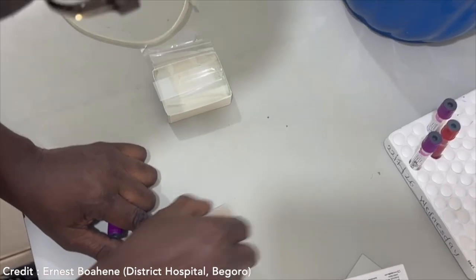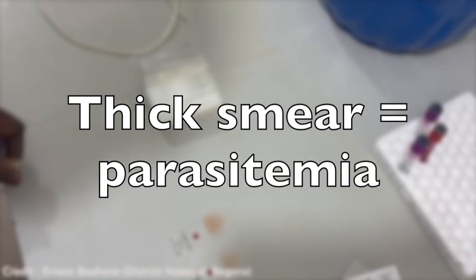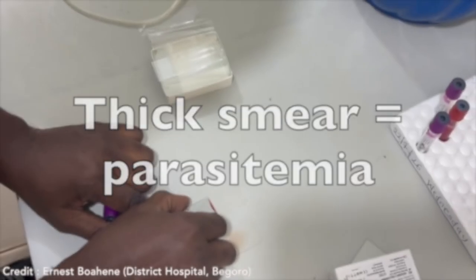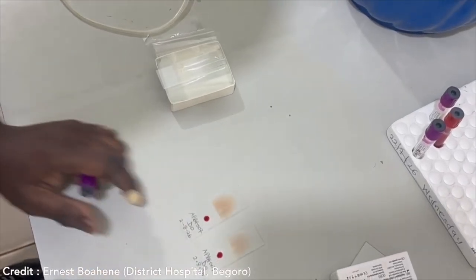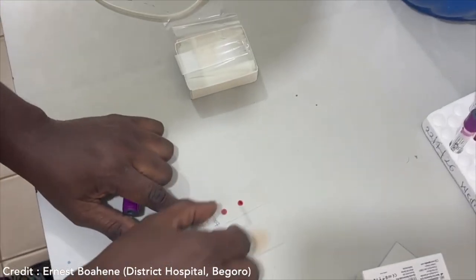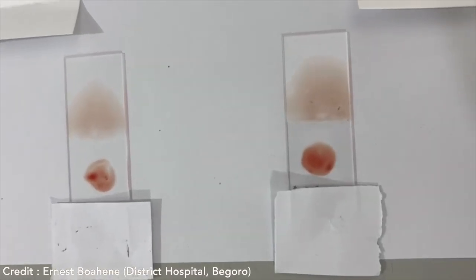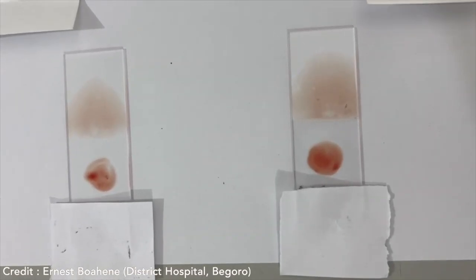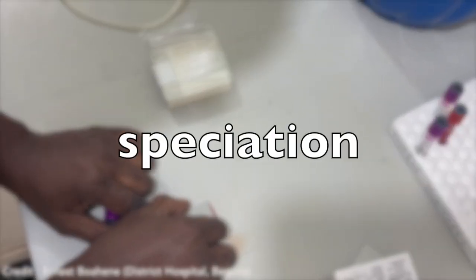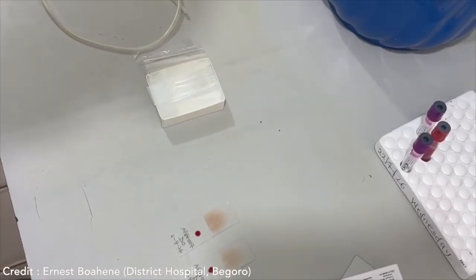But if you're doing a thin, then you use 2 microliters. The thick film is designed not to be fixed, as mentioned, and it's designed to really give you an idea of the quantity, how much parasitemia you've got. The volumes are calibrated so that you actually get the right density. So your 6 microliters of blood for your thick film should give you a semi-transparent smear, while the thin smear allows for more accurate speciation because it's much thinner. So just 2 microliters of blood is used.